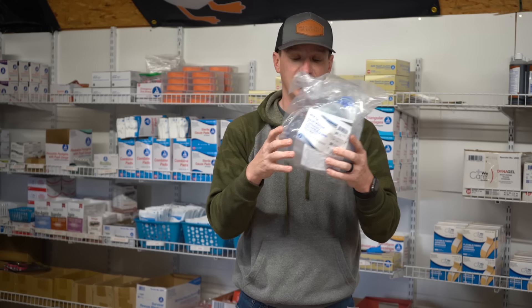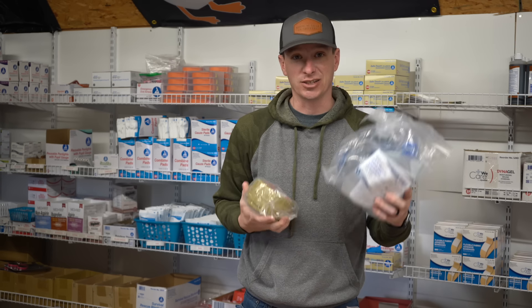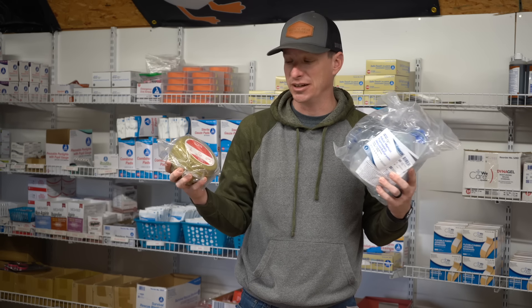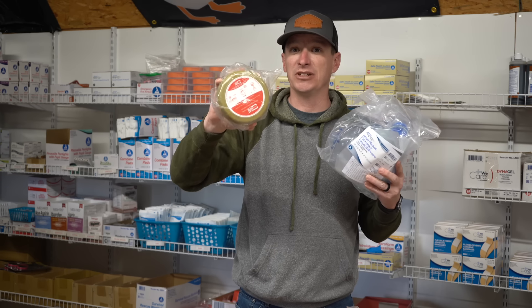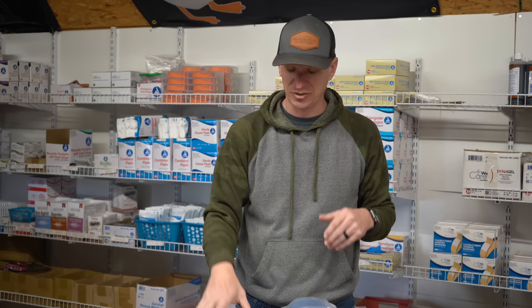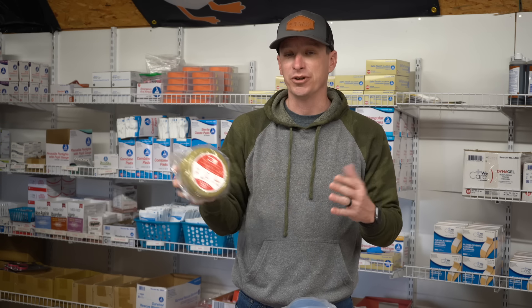If you have more advanced training on how to use a bag valve mask, that's something you could throw in there. You've got an adult BVM mask option. If size is a concern because your kit is getting fairly big, you could do a pocket BVM — used so you don't have to get your face down there. Just make a seal, squeeze the bag every six to eight seconds to get chest rise. You're going to want training in how to use these before you put them in your kit.